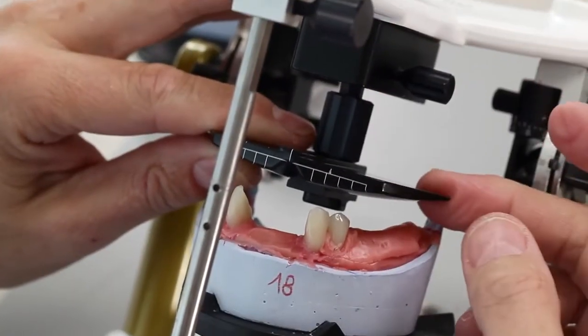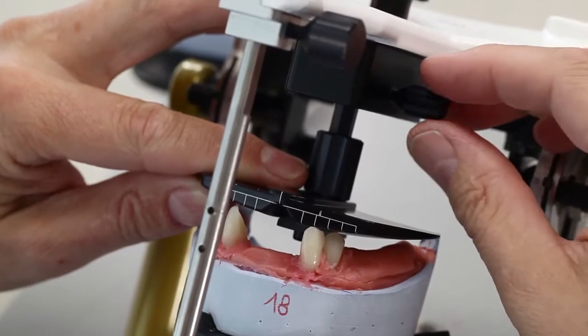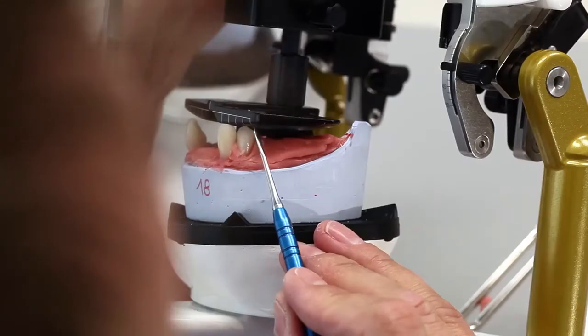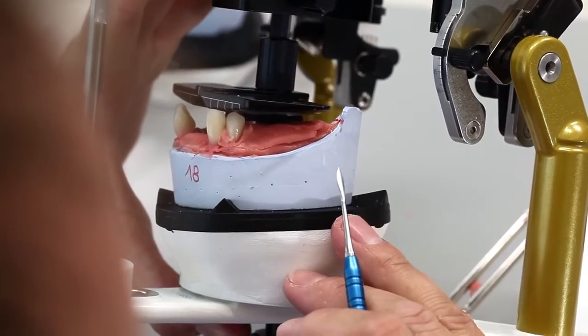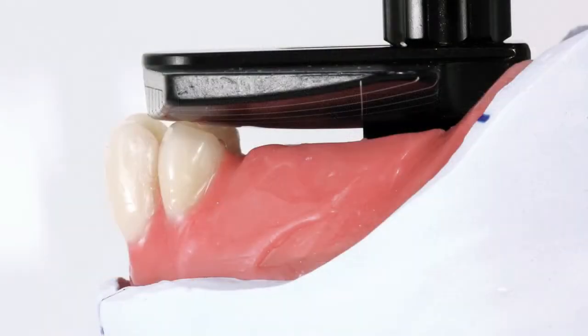Adjust the template for the posterior tooth setup, for which the bottom side of the anterior part is aligned according to the cusp tip of the mandibular canines. In the posterior area, the underside of the template ends in the area of the distal thirds of the retromolar pads. With the setting up template, the curves of Wilson and Spee are automatically taken into consideration. This results in a bilateral standardized Monson compensating curve with the posterior teeth.